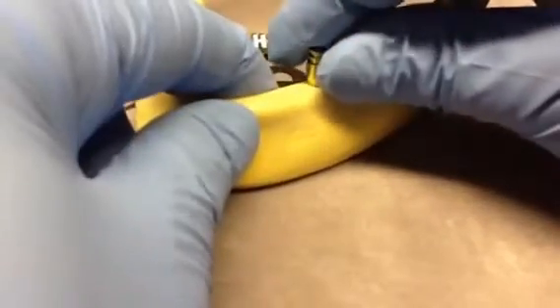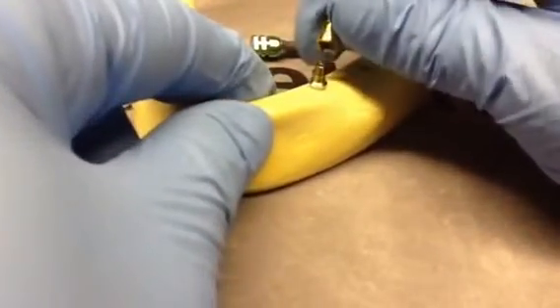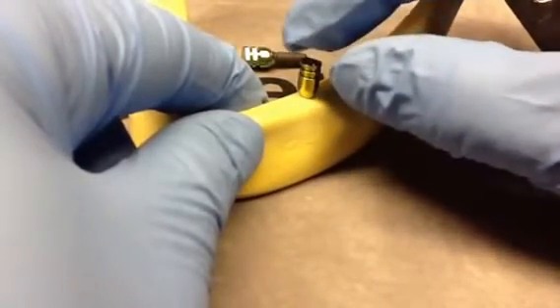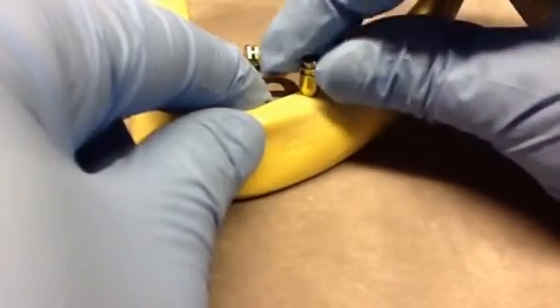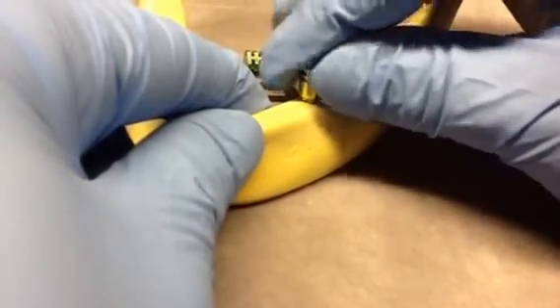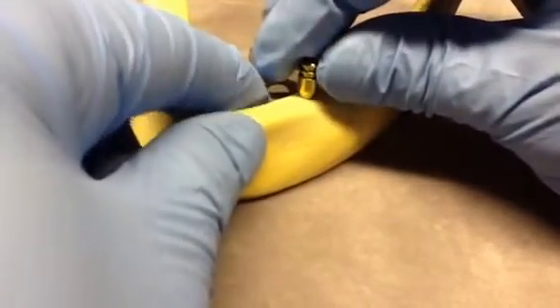This simplifies the process, which also helps to improve the accuracy of these impressions. They come in a wide neck diameter and a regular neck diameter. The abutment heights are 4, 5.5, and 7 mm.